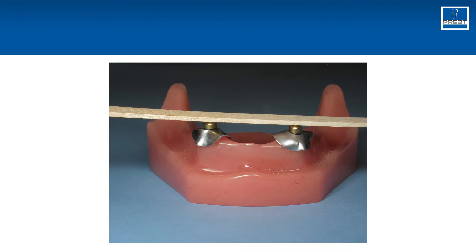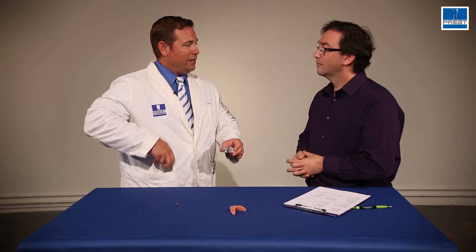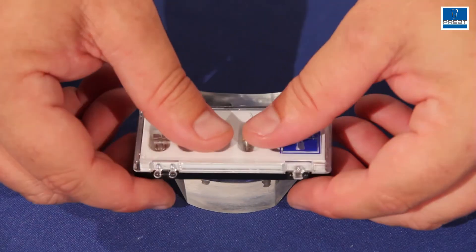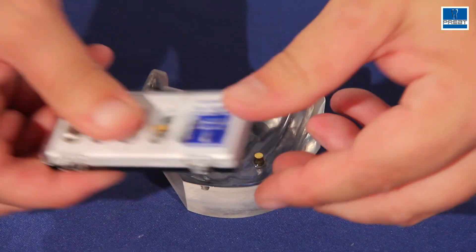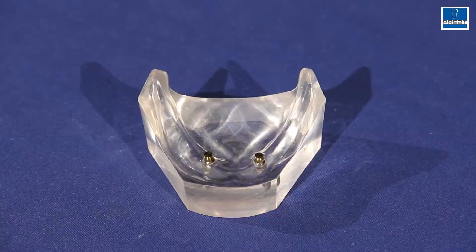Second trick is chair side. You can take any flat instrument, you can take a tongue depressor, you can take a popsicle stick, and if you press down, this is going to rotate the balls to the same plane. Sort of auto-adjusts along the flat plane. Absolutely.